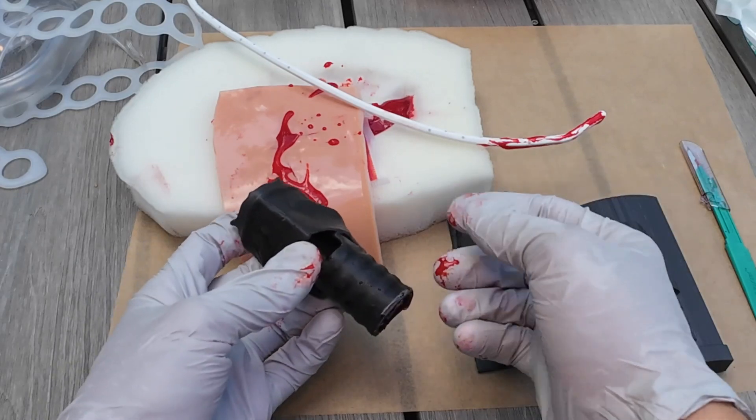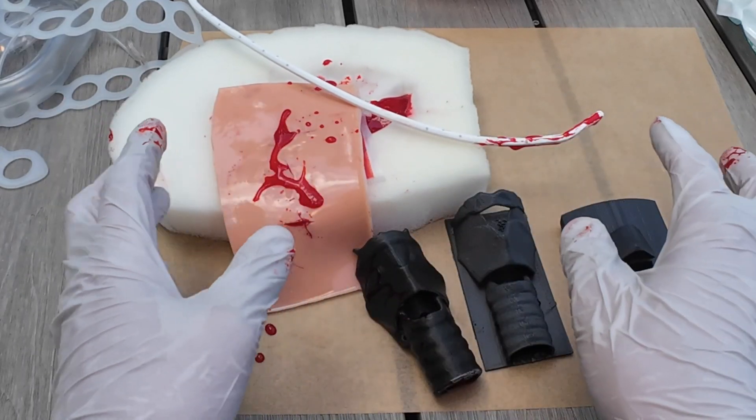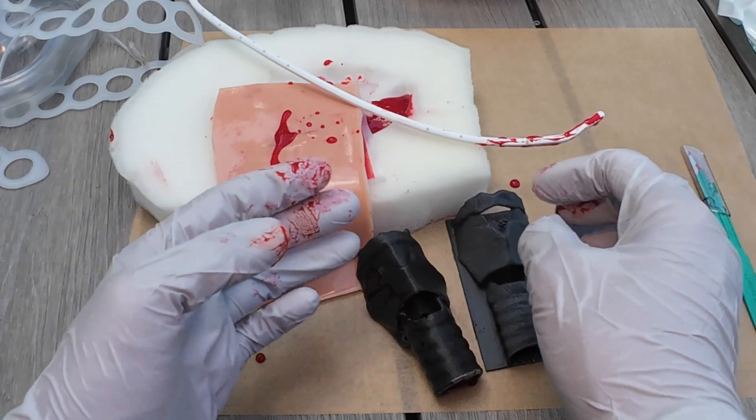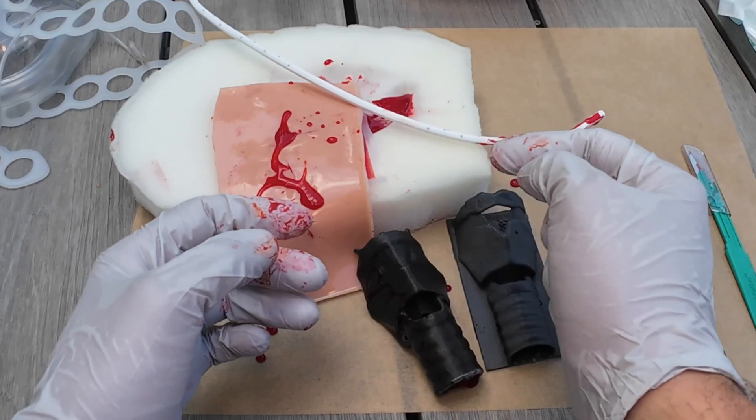We have all three of these options. We did not make them, so we did not create the 3D print. But we do have, for a printing fee, them on our website where you can purchase them. We'll sell pieces of skin and blood packs as well.